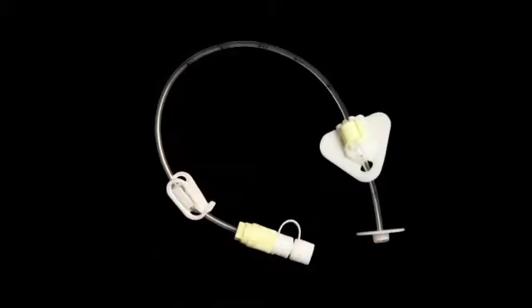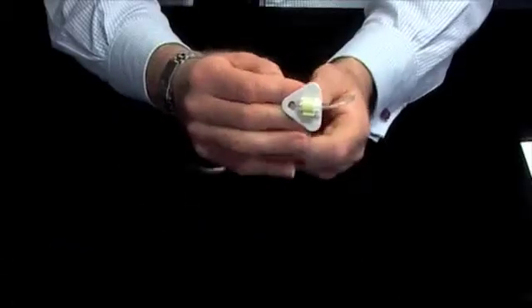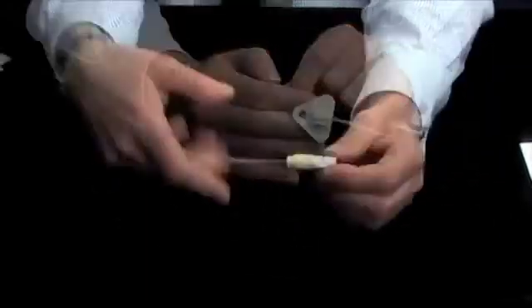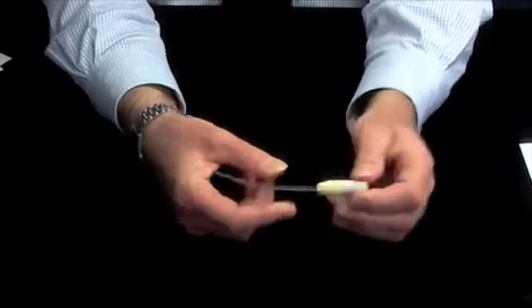I'm going to demonstrate the way the tube works and is put together. This is a typical gastrostomy tube, called a PEG. On the inside there's a plastic flange that sits inside the stomach. On the outside is a clasp that sits on the outside of the tummy wall. On the end of the tube there's a connector with a stopper — you can undo the stopper and the feeding tube just plugs in and locks in place securely. It's reliable and straightforward technology.